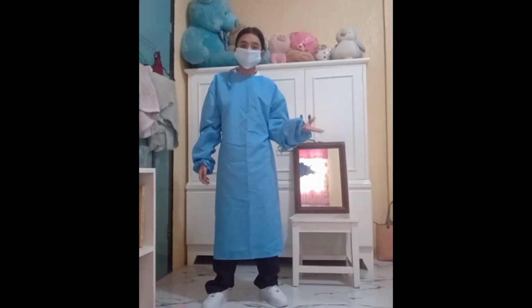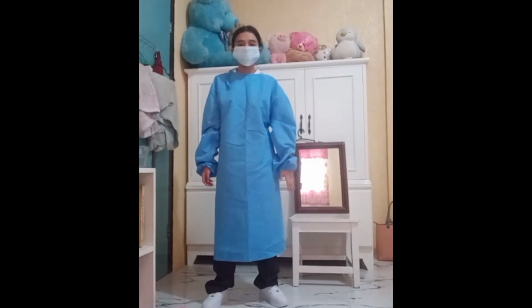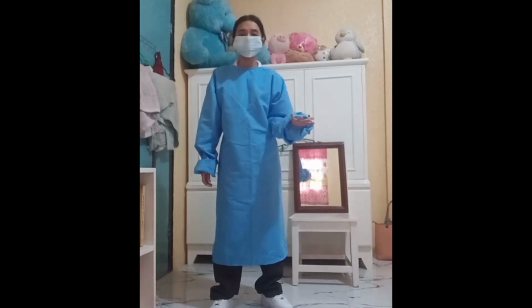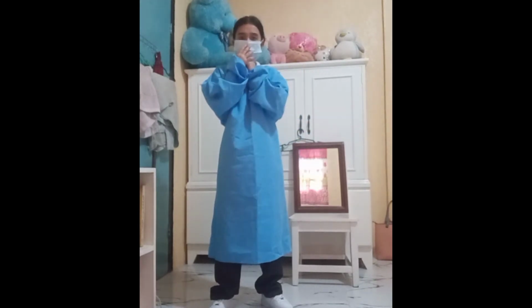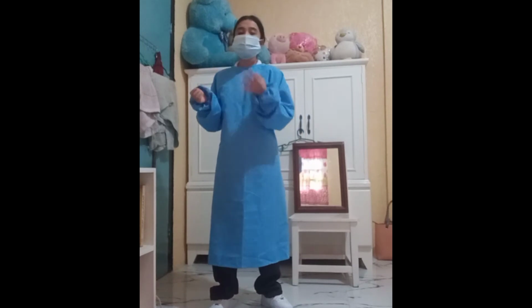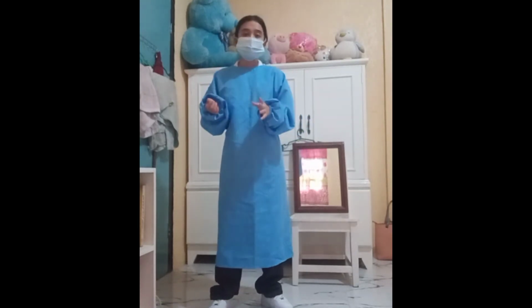If glasses are worn, fit the upper edge of the mask under your glasses. With the edge under your glasses, clouding is less likely to occur. Secure the lower edge of the mask under the chin. To be effective, the mask should cover both nose and mouth because air moves in and out of both.